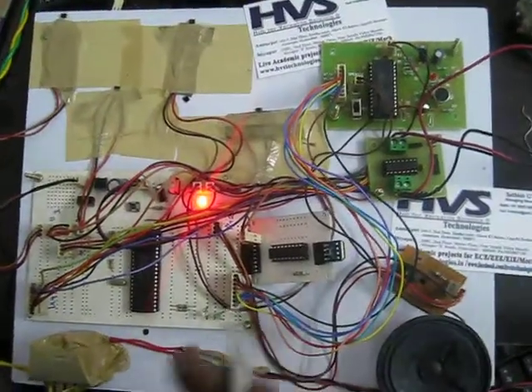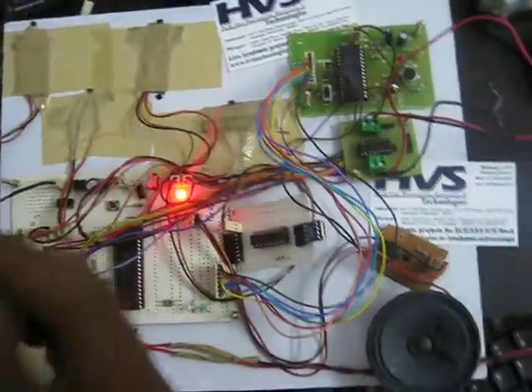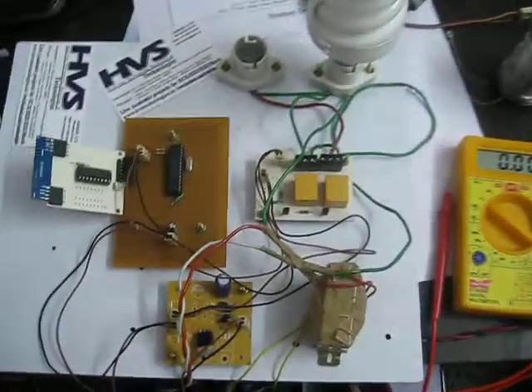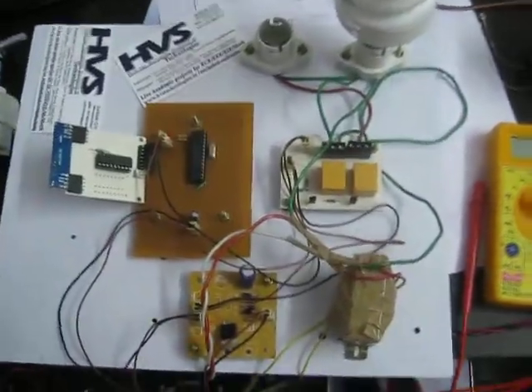This is the project of touch tongue control, wheelchair and device controlling project.